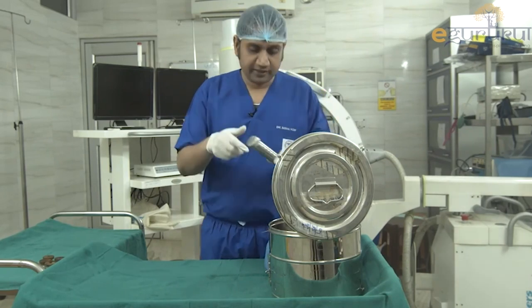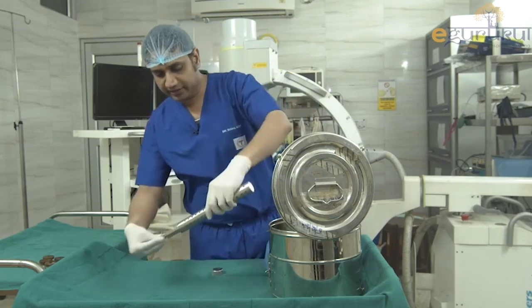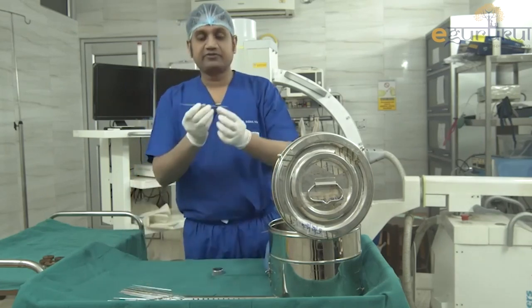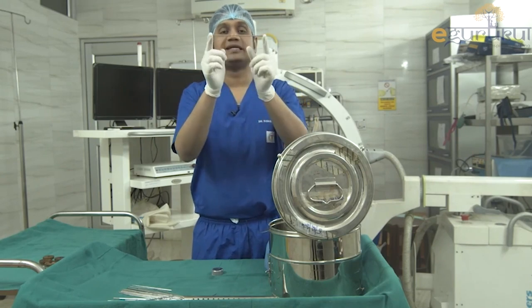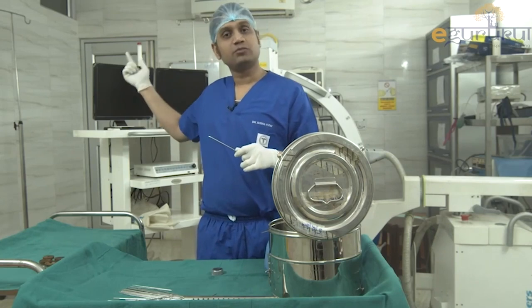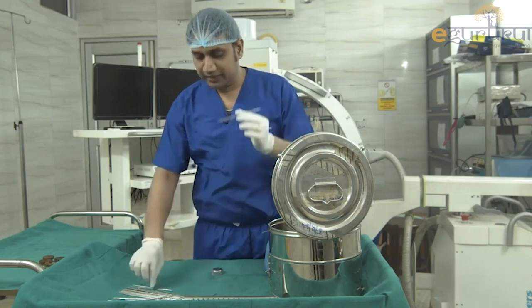Next is a round box containing multiple wires. The first one is a K-wire — both ends are very sharp. We have seen its use in closed reduction and internal fixation (CRIF): you visualize under the C-arm and fix directly into the skin, which is why both ends are made very sharp. You can use either end.